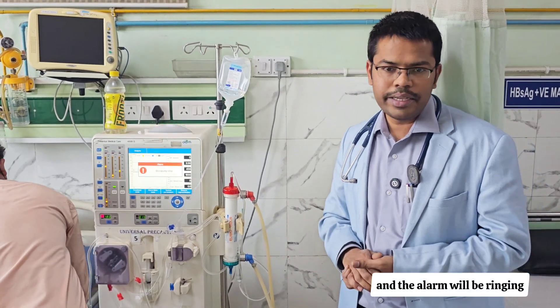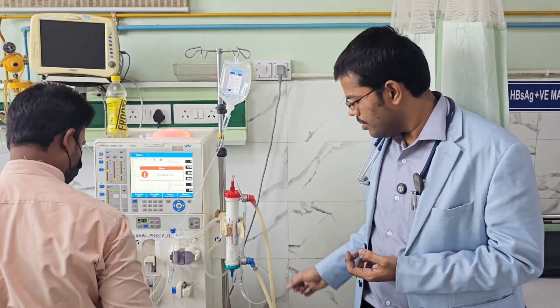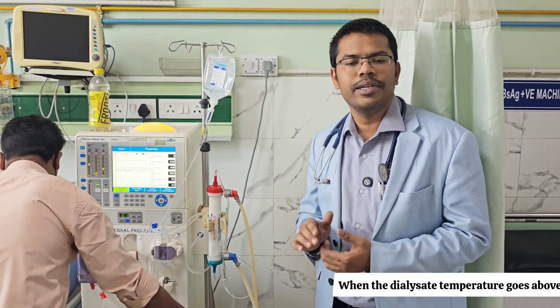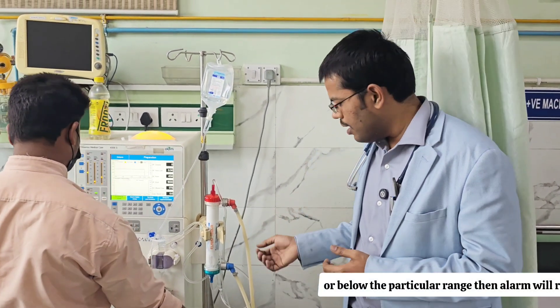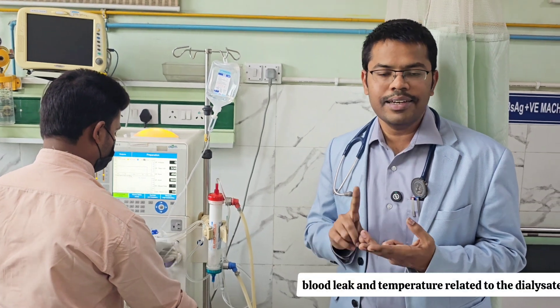The third dialysate circuit alarm is the temperature alarm. The dialysate has a particular set temperature — when it goes above or below that range, the alarm will ring. So the three most important dialysate circuit alarms are: conductivity, blood leak, and temperature.